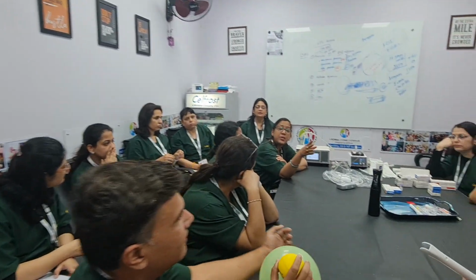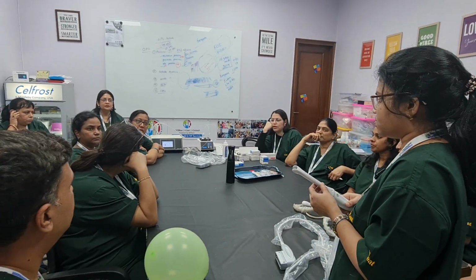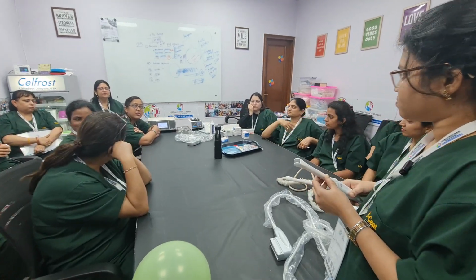To diagnose Mullerian anomaly, which is better, TVS or transabdominal? I think it's TVS only, ma'am. Transabdominal is mainly for fetal.